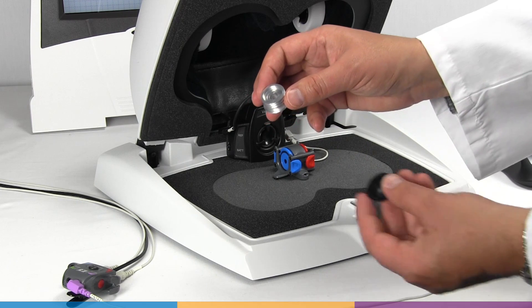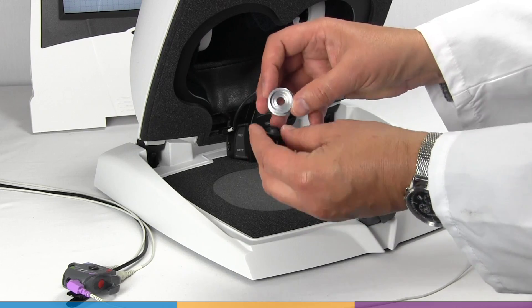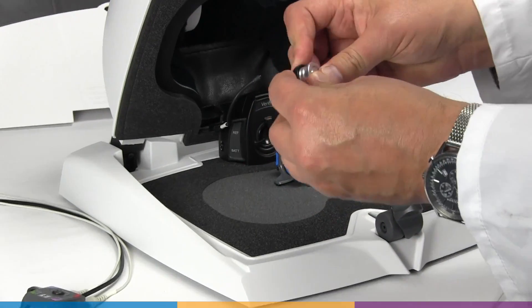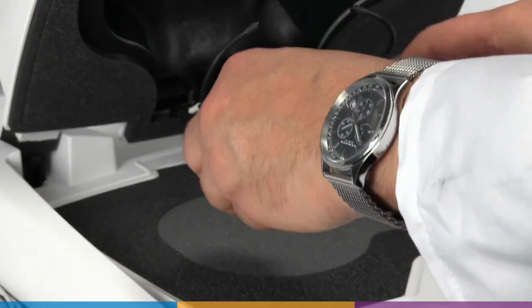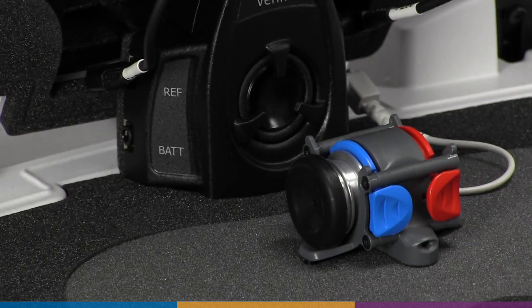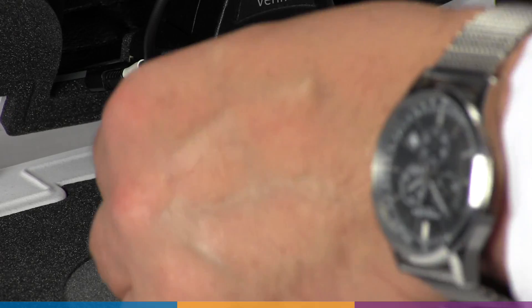The transducer calibration is performed using the 0.4 cc wideband coupler and the TRIC, or Thin Tube RIC, adapter.